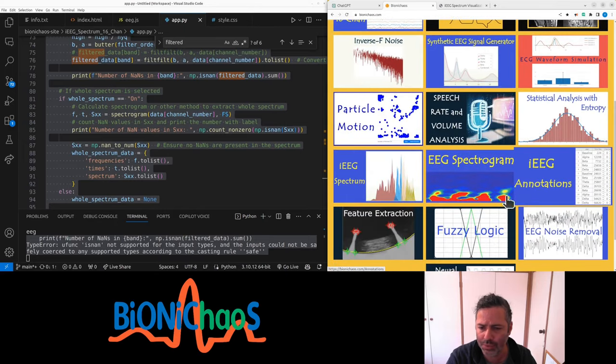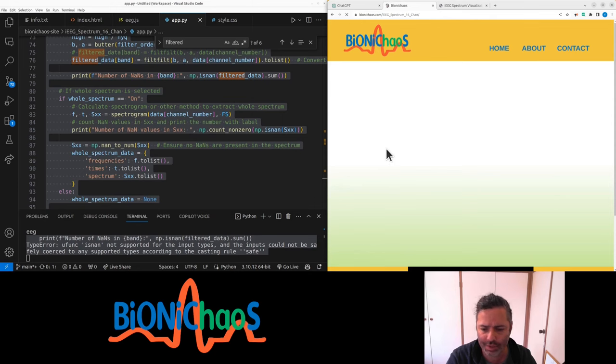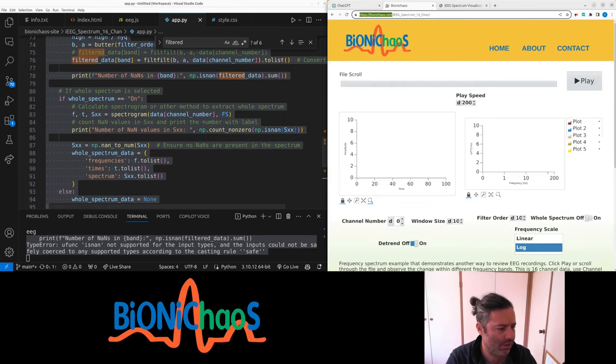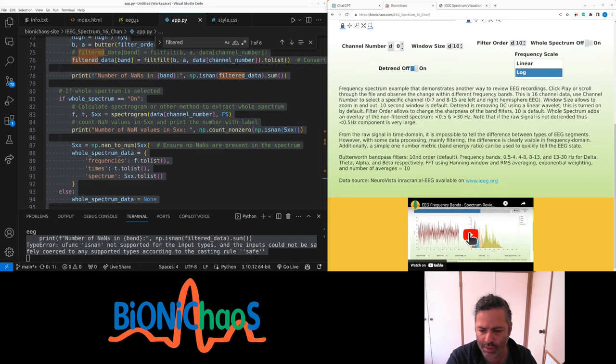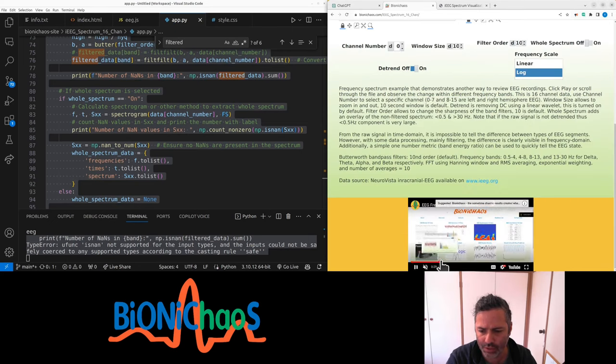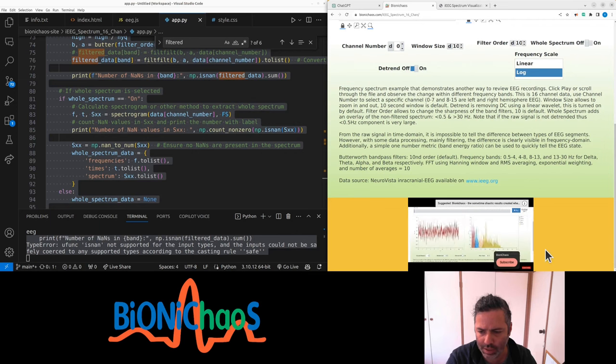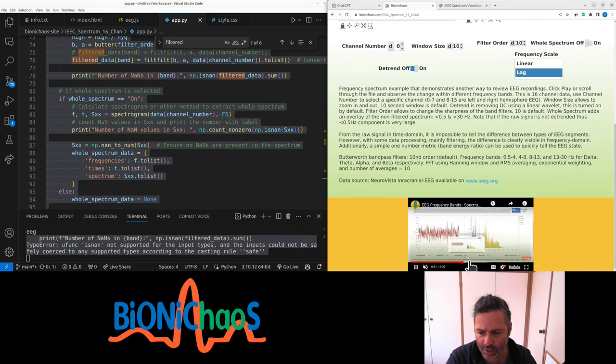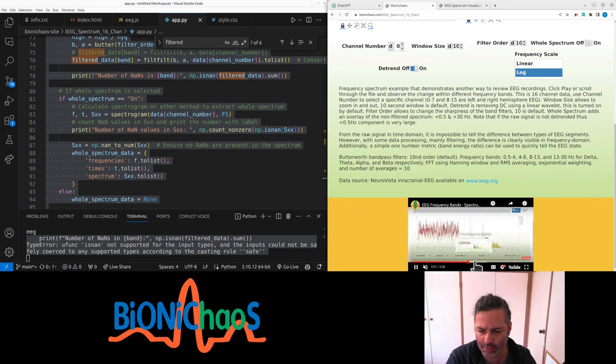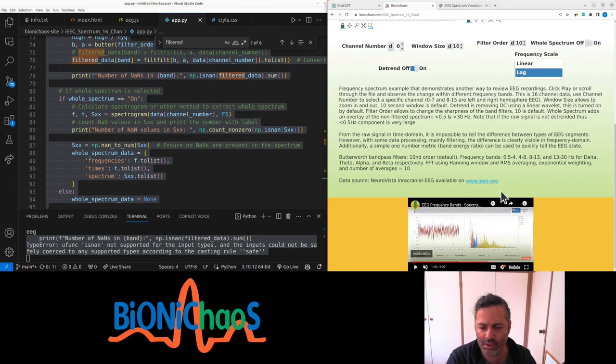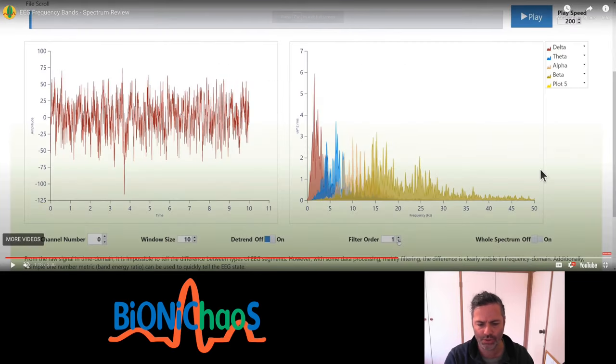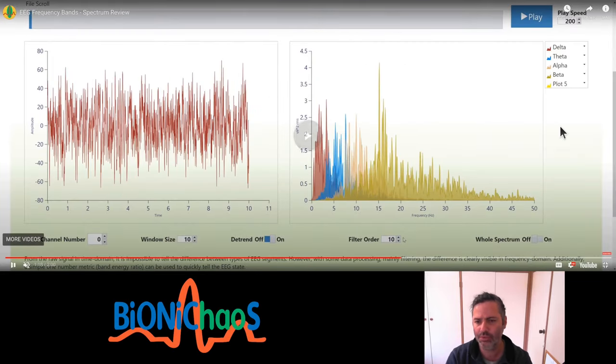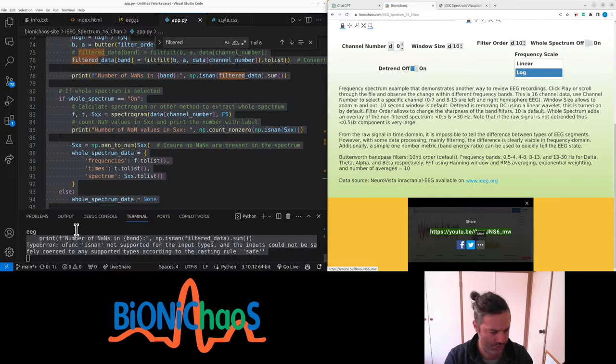So we're doing this tool here. Still have the old version of it and that's how it used to look like. Here we have the video there of how it meant to work. Yes, basically just scroll through a file, shows you the raw EEG and its spectrogram. Should be really straightforward actually.